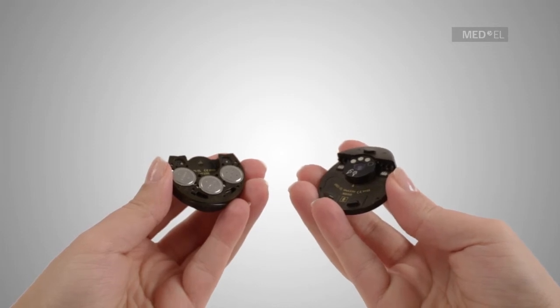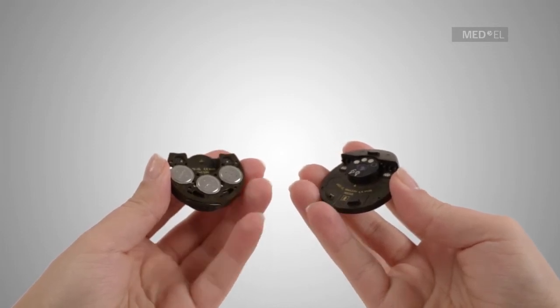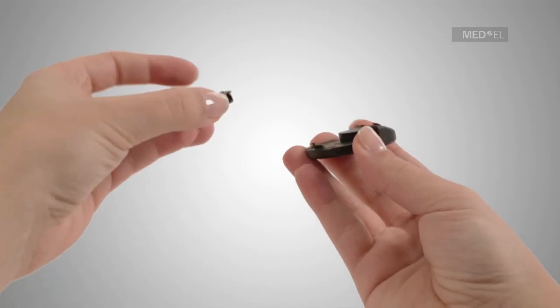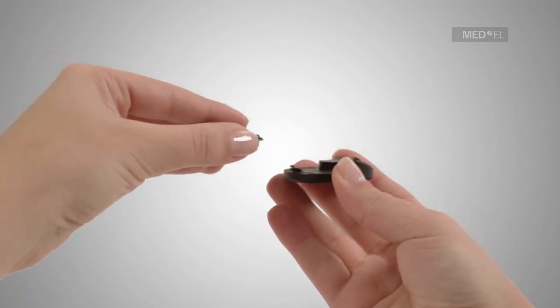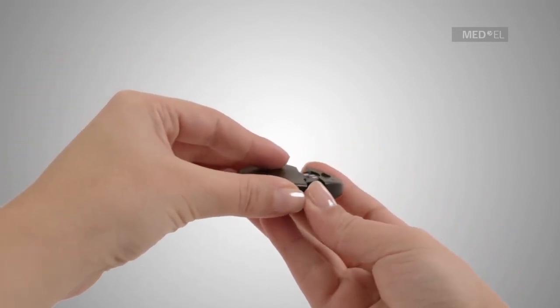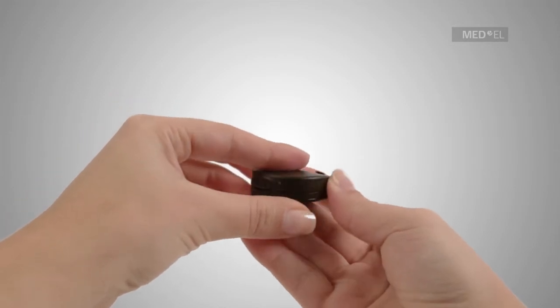The battery pack should come in at a slight angle against the backside of the control unit before being gently pressed towards the control unit.